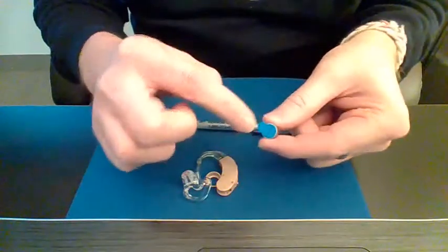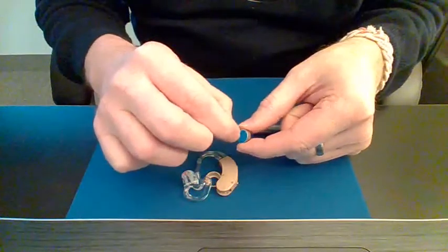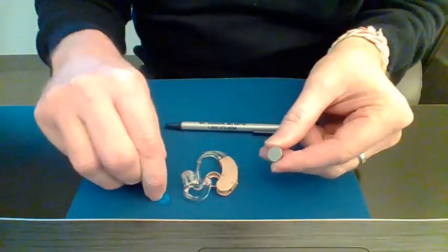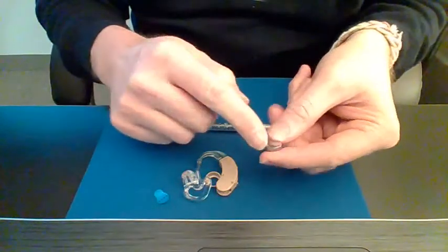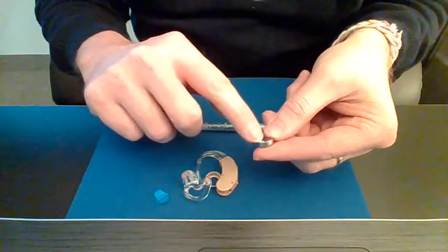So what you do is they'll have a little tab on them. This is a zinc air battery, so you have a little tab and you just pull the little tab off. Once you remove that tab, you've got a flat edge. See how flat that is there?